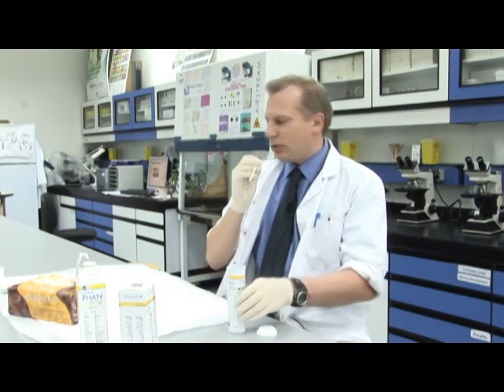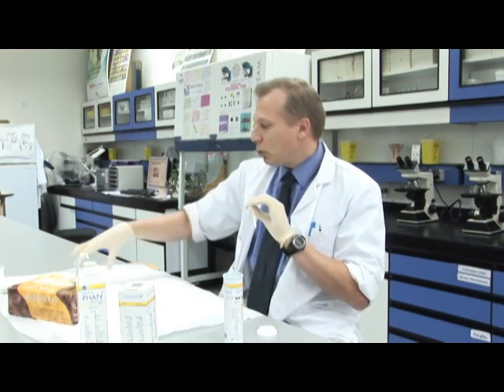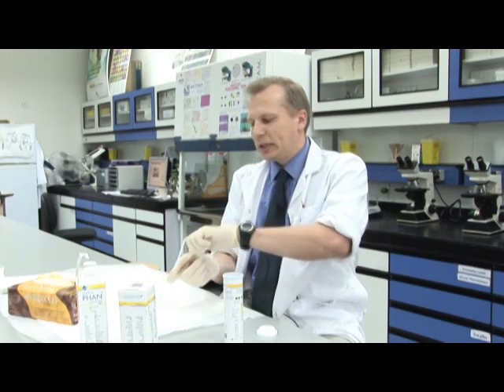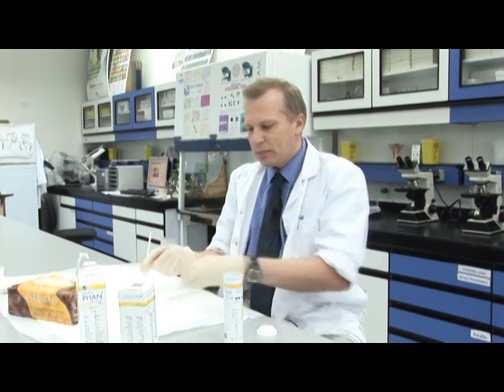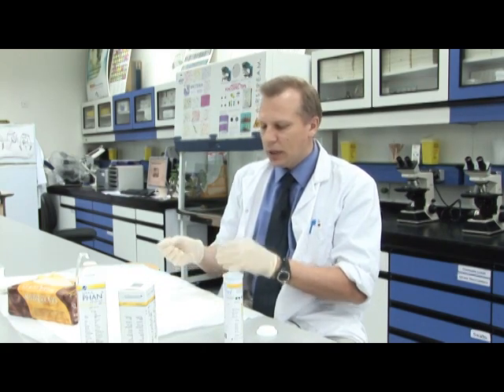I'm going to demonstrate the dipstick test on a couple of urine samples that I have here. We already know what to expect in the urine samples so the test results should be a given, providing the strips are working okay. Of course the strips being chemically based they have a storage life and it's important that we don't use them past the expiration date.